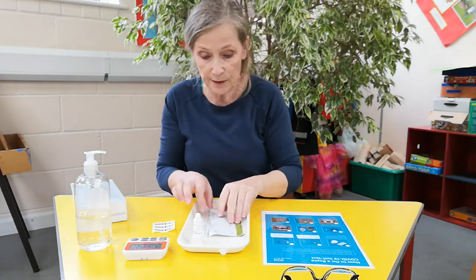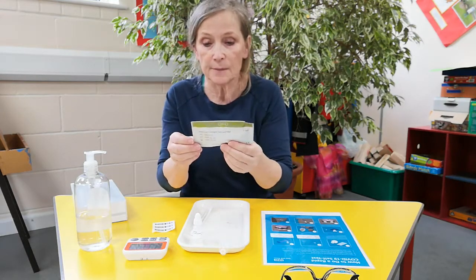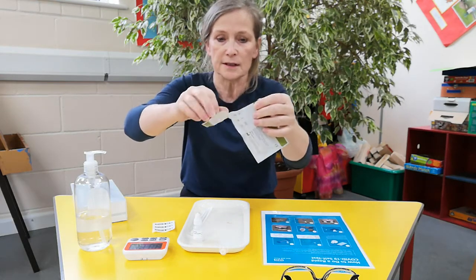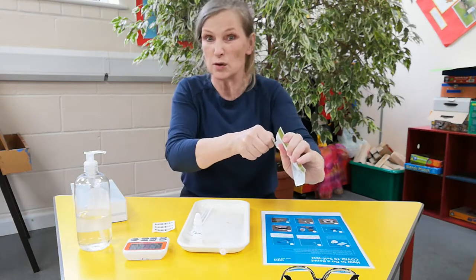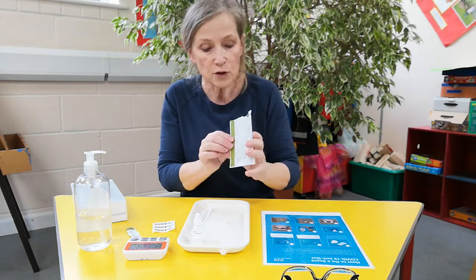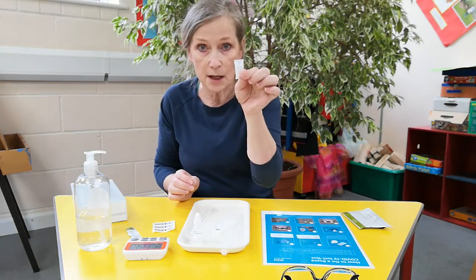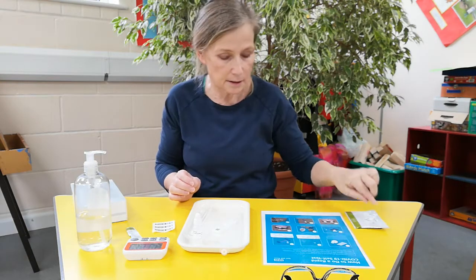So to start off with, we'll open up your test. You can check the expiry date, but they should all be fine. There's a tear — you tear it open. You've washed your hands, you've got your nice clean surface, you've got everything you need with you: a box of tissues or a tissue nearby, your hand gel. Then you tip it out. It comes with one of these desiccators so that it doesn't get damp and horrible.